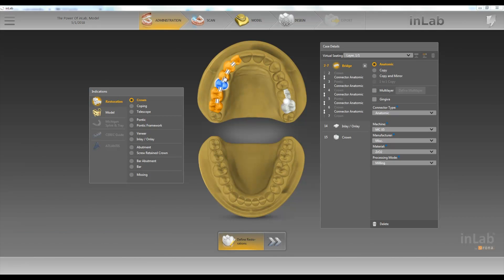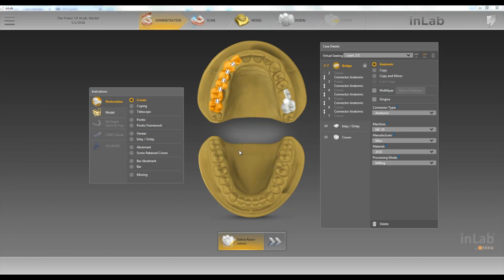You can see we have a bridge over here, then an onlay and a crown over here. Our connectors are what's in between right here. Right now we have an anatomical connector, and we usually use that if we're going to reduce our bridge into a framework.